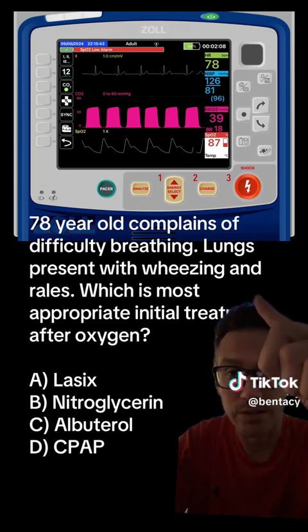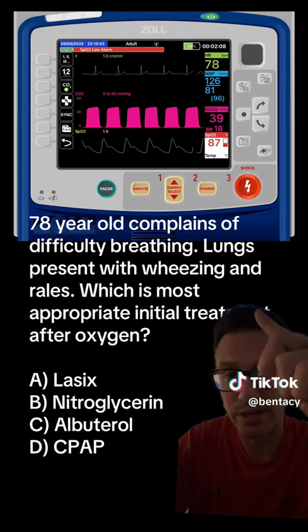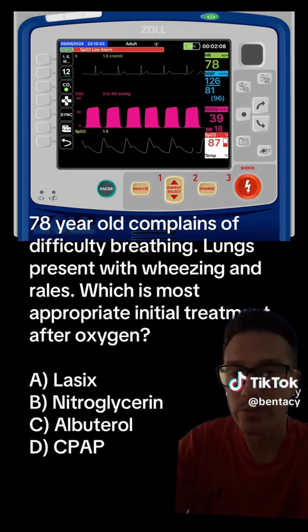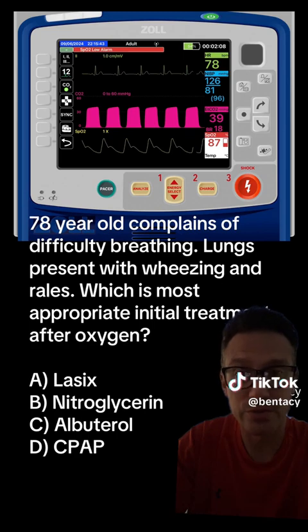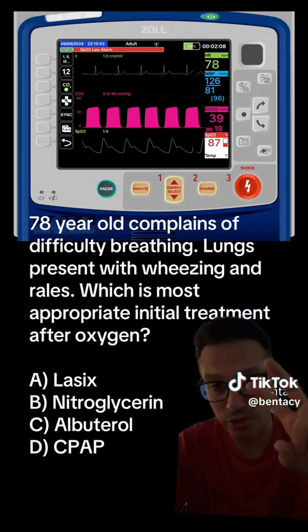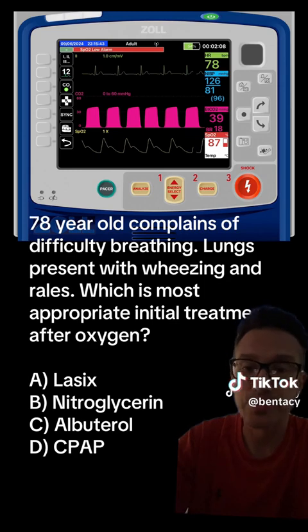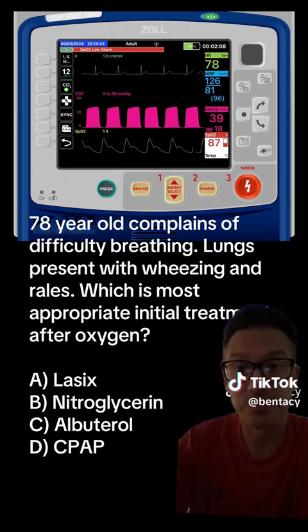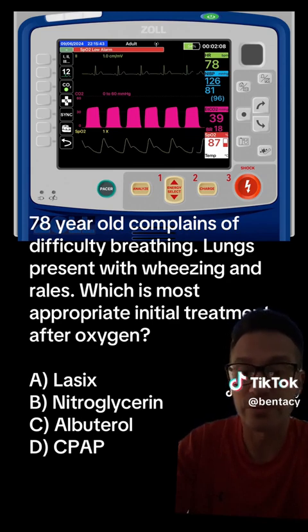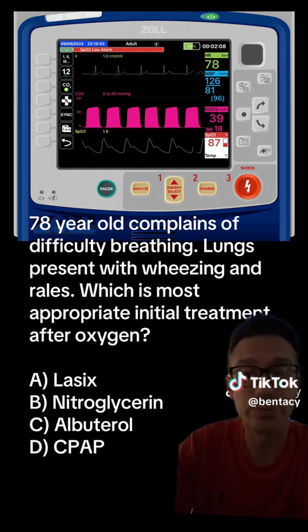If we look up here at the monitor and specifically look at the waveform — the qualitative and quantitative measurements of that capnography — with wheezing, if it is a bronchoconstriction issue, we're going to see that slow upsloping or the general shark fin appearance within that waveform. So this patient has rales and wheezing, but the wheezing based on the capnography is not caused by a bronchoconstrictive or an inflammatory response.